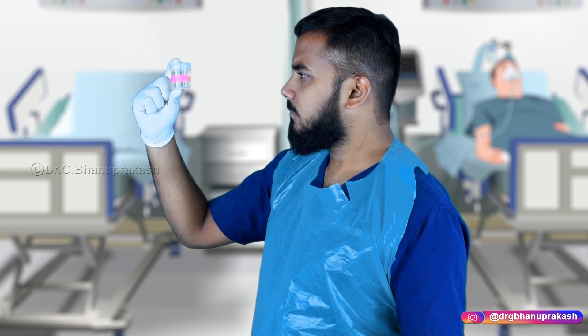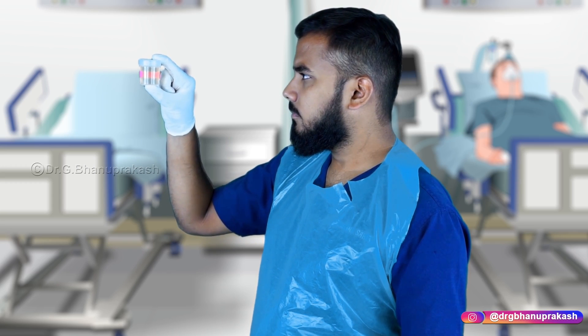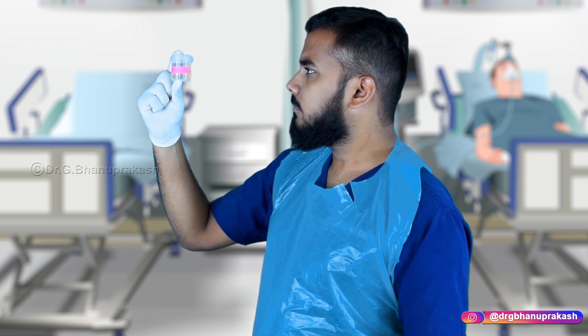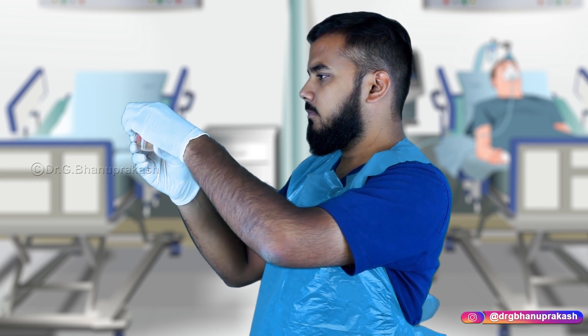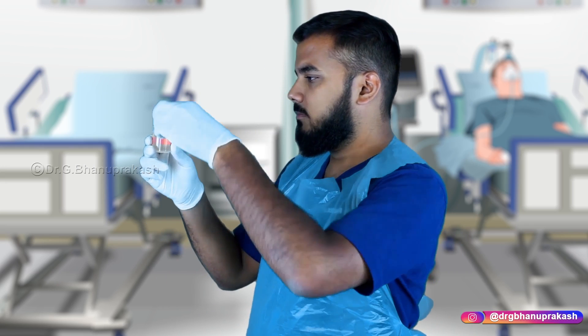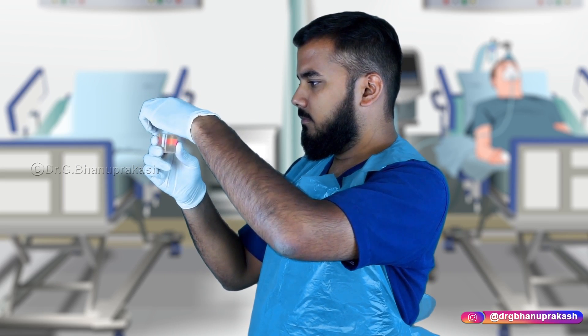After taking the urine sample, carefully inspect the color of the urine. Not only the color — also inspect the clarity of the urine. After that, open the lid and smell the urine, then close the lid back. We are now ready for the dipstick procedure.